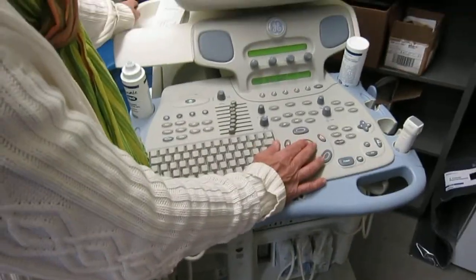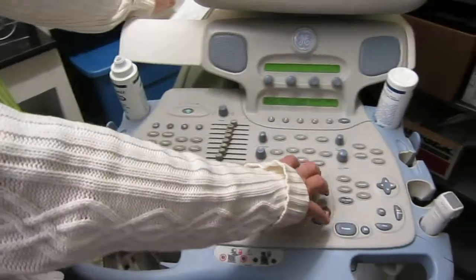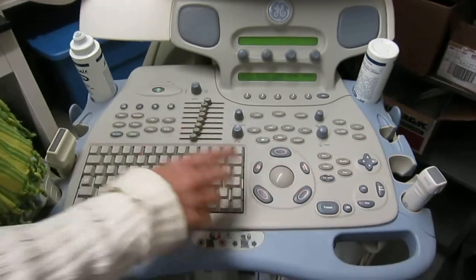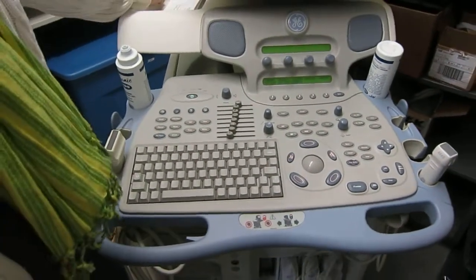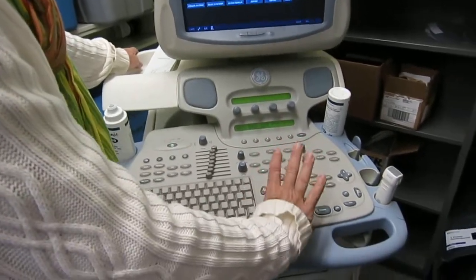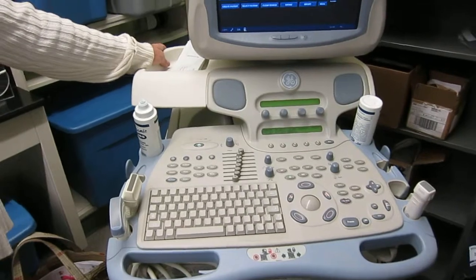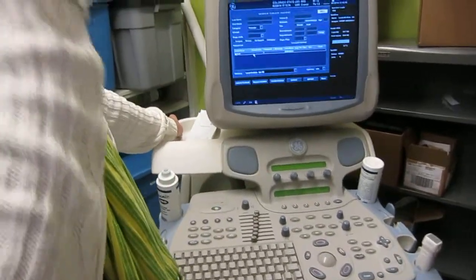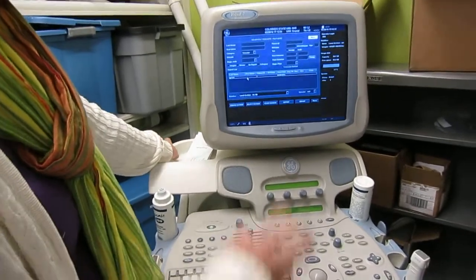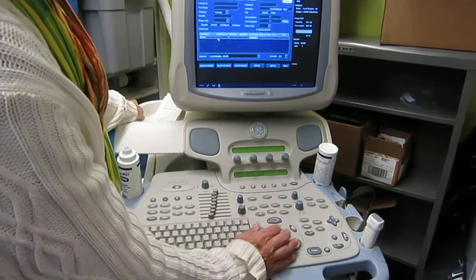So I created this study. Are these different buttons? Oh, all the same thing? These are all set buttons. They're all the same. Doesn't matter which one you push. So if you're used to just pushing with the tips of your fingers this way or right or left, it doesn't matter. They're all set. It's just like a mouse.